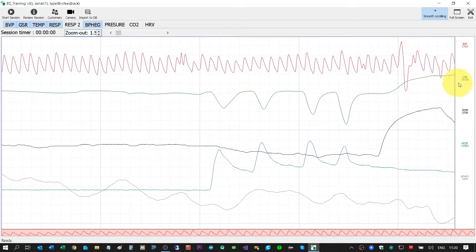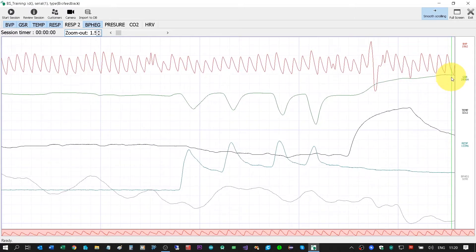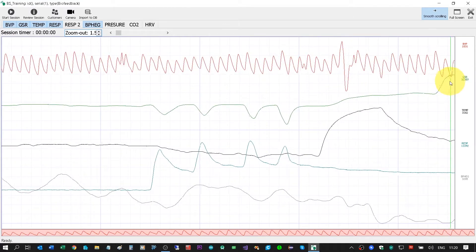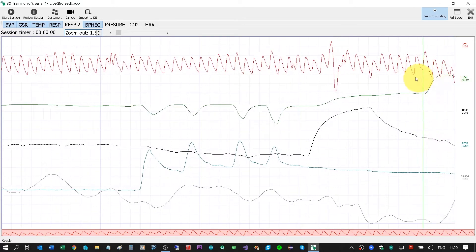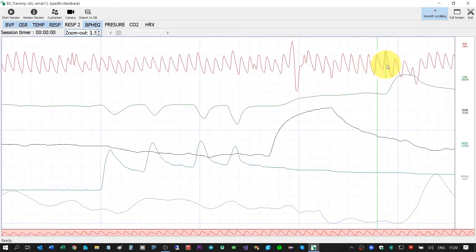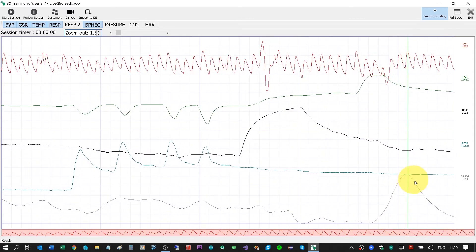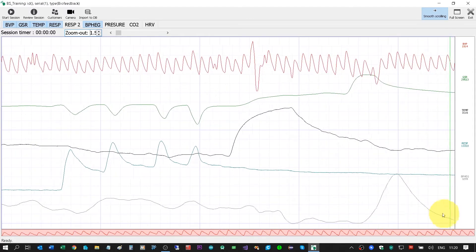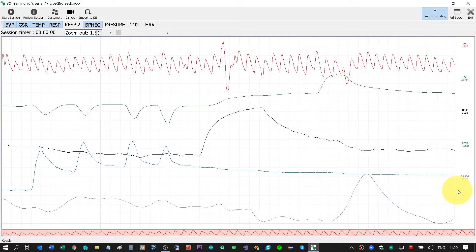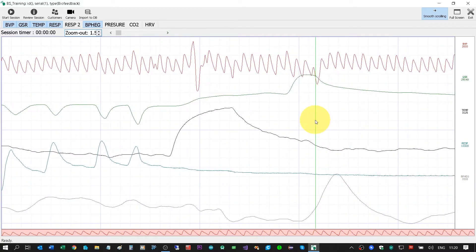The green one is the GSR — I will make the GSR higher and it goes up. These waves are from the heart sensor, and this signal is also from the heart sensor — a different signal — this is the blood pressure. So all the signals are okay.